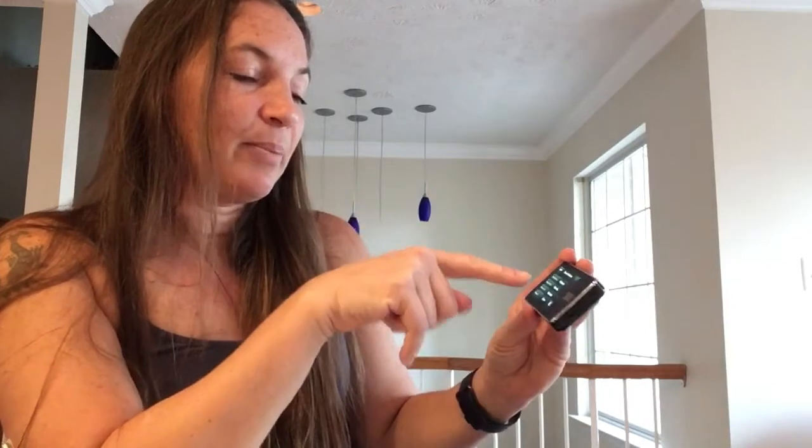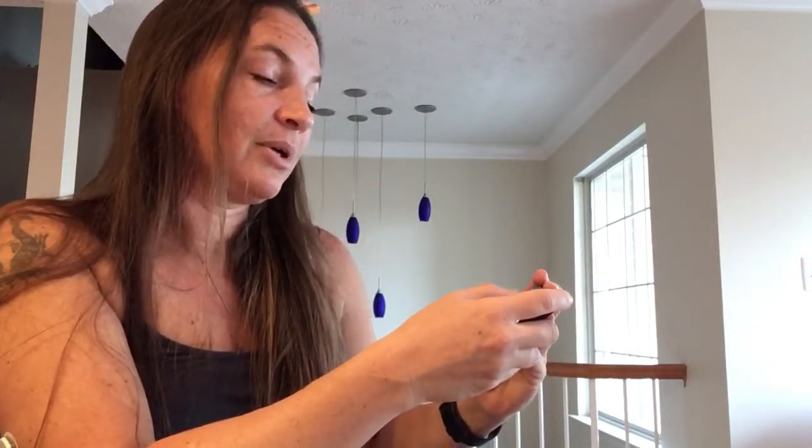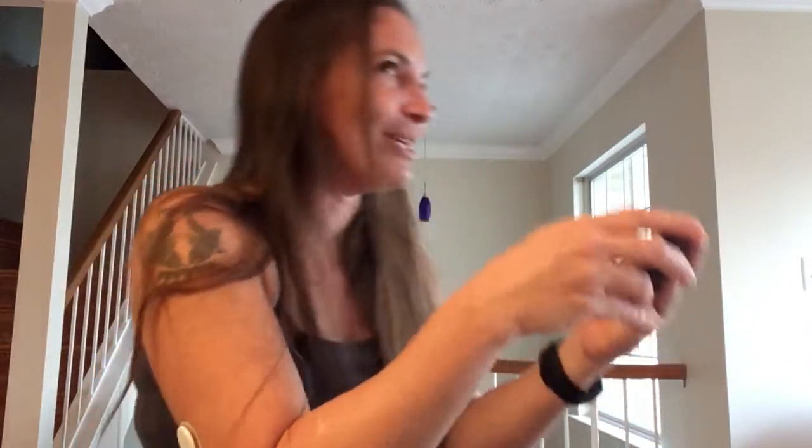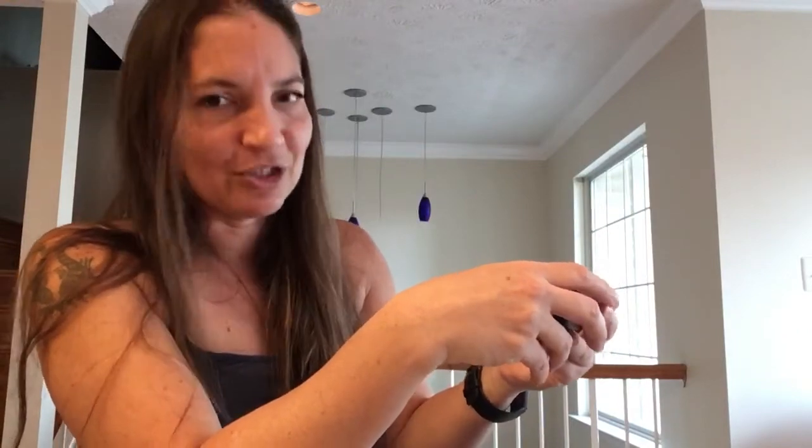The keypad I put to low — that's only because I used to have it on silent, but then I can't tell if I've hit a button or not. I had young children the last time I did that setting and didn't like the keypad making sound at night, but I've changed that. Bolus vibrate, quick bolus vibrate, fill tubing vibrate — for CGMs I'm going to try soft and then probably set those to vibrate as well. But again, that's all under sound volume and it's all very personal.